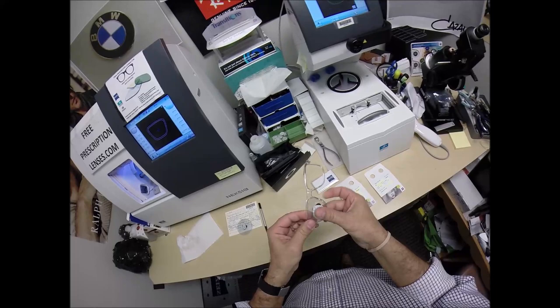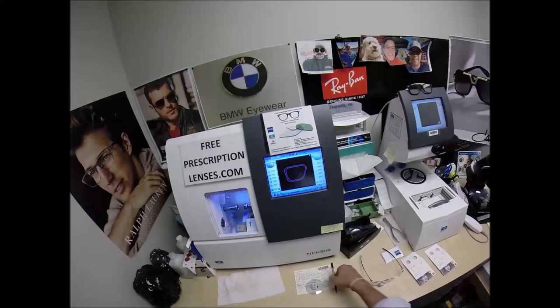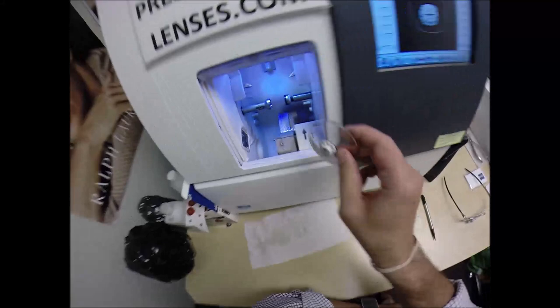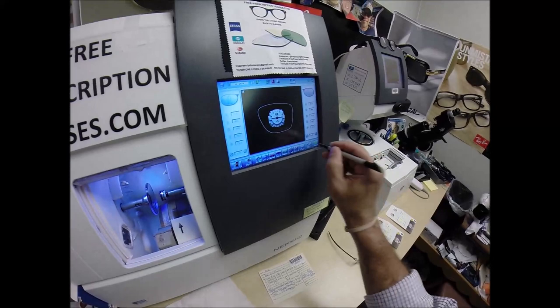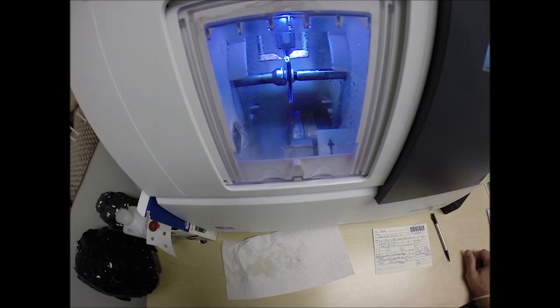Let's see if it fits the second time around — I'm going to tuck it in at the outside corner and push down at the nose. Now we're cooking with peanut oil! Flip that over to L. Press the sticker on there firmly, place the magnet into the chuck. Hit the start button, the clamp shuts. The lens is going to be traced by the two styluses, making sure it's large enough to fit into the frame.